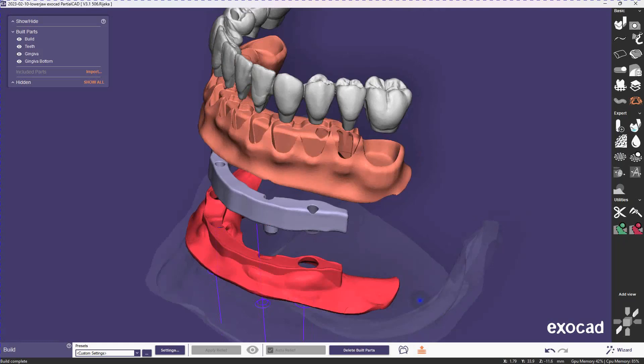We're going to be importing the bar and treating it as the framework, and then we're going to manually make the bottom gingiva with a few steps using drafting of that bar.